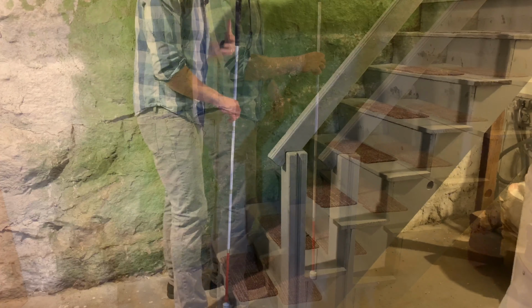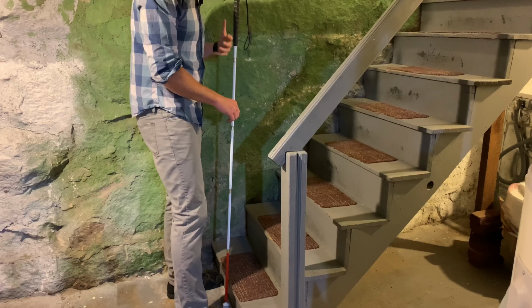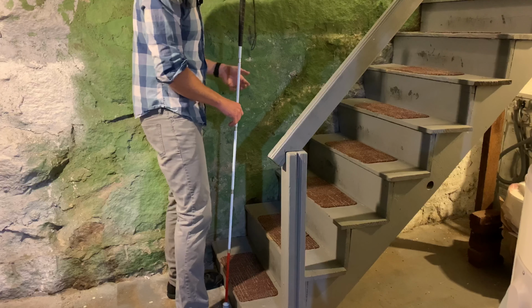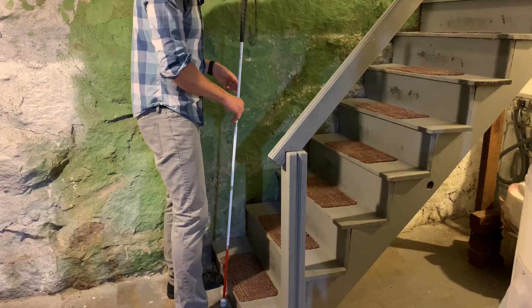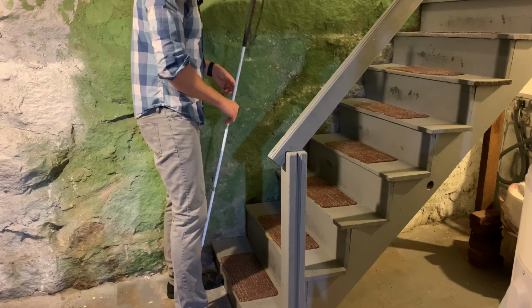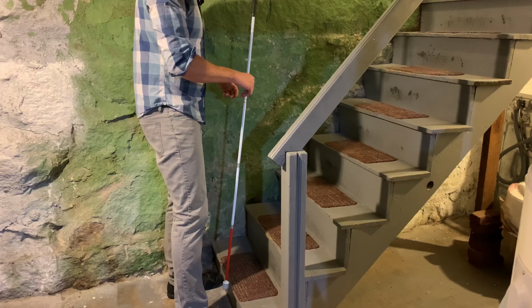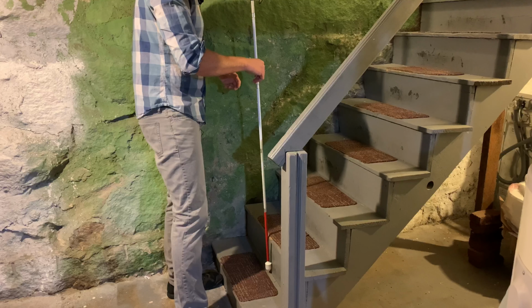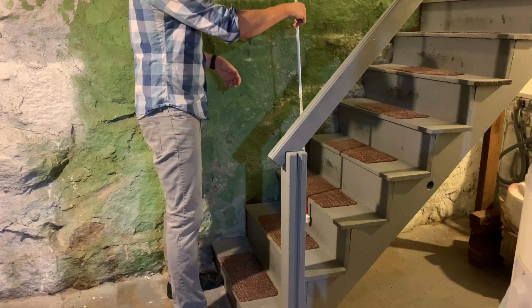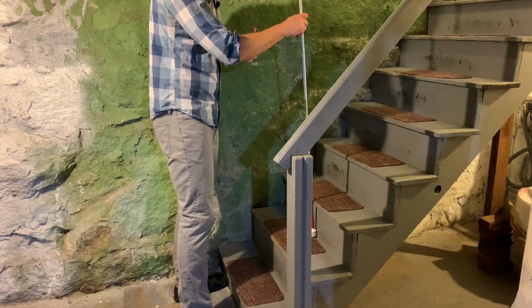So now for step number 6, I'm going to be looking for the third stair up on the flight of stairs or the staircase. And to do that, I am going to tap the lip of each step. So right now I'm bringing my cane up vertical, found the lip of the first step, found the lip of the second step, now found the lip of the third step. All right, so now for step number 7.